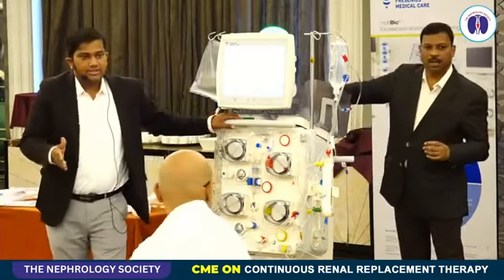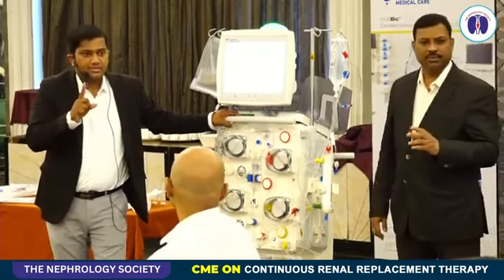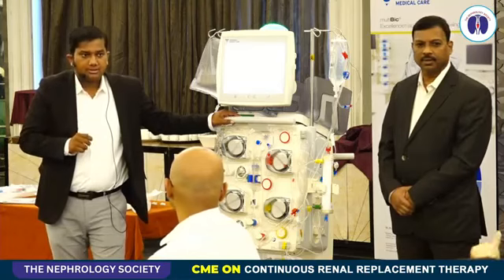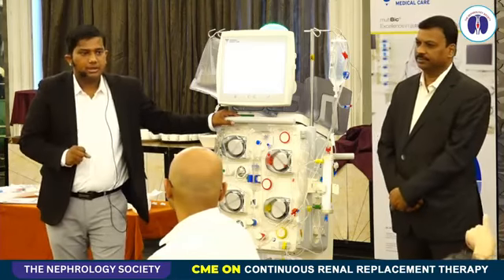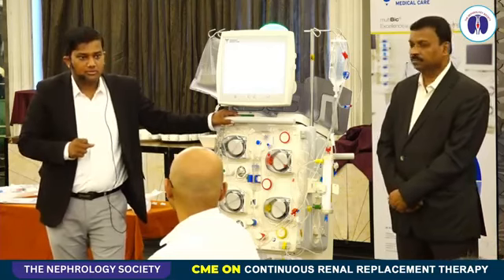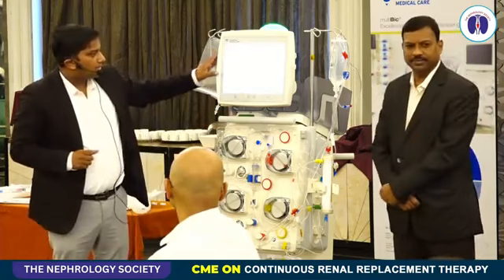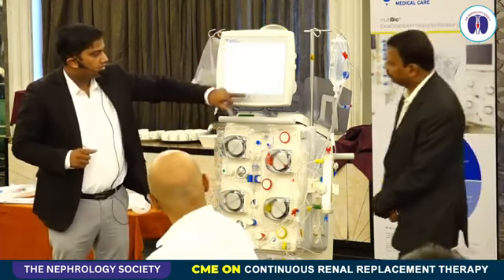It's 10 kg each. So each scale has a capacity of 12 kg. Each scale. 10 plus 10, 20. And the maximum capacity is 24. Yes. So yeah, you can even see, okay, sorry.